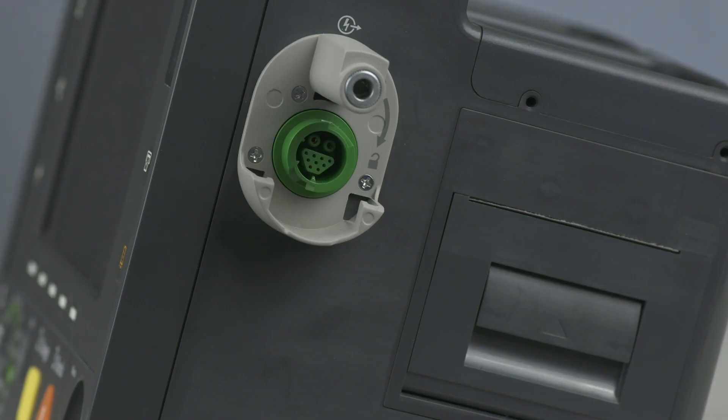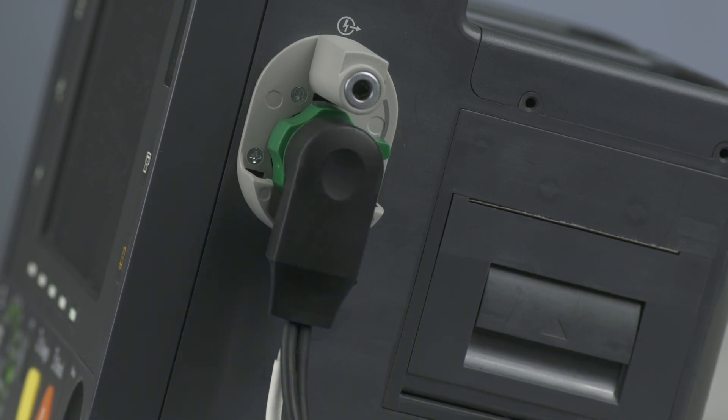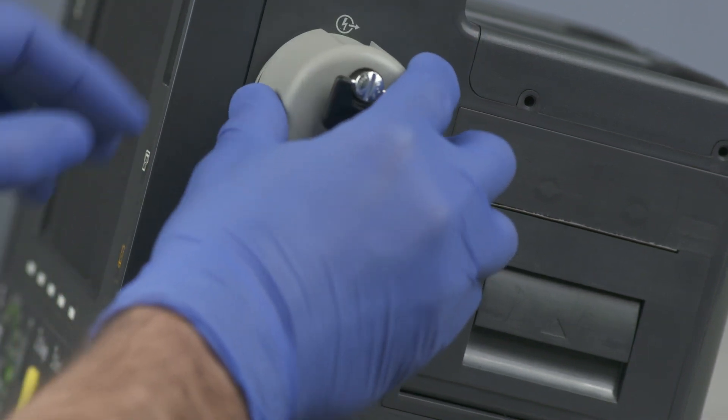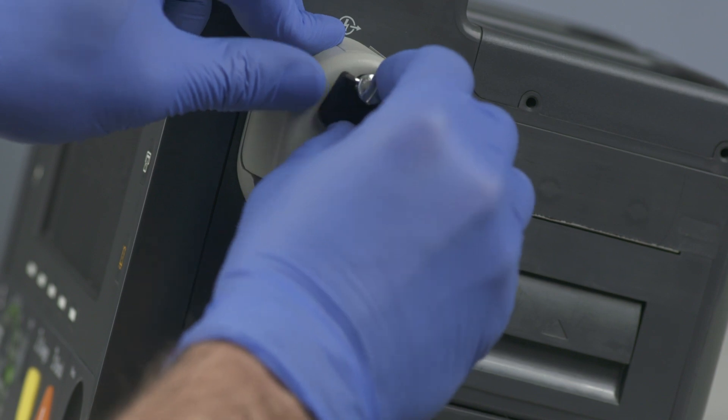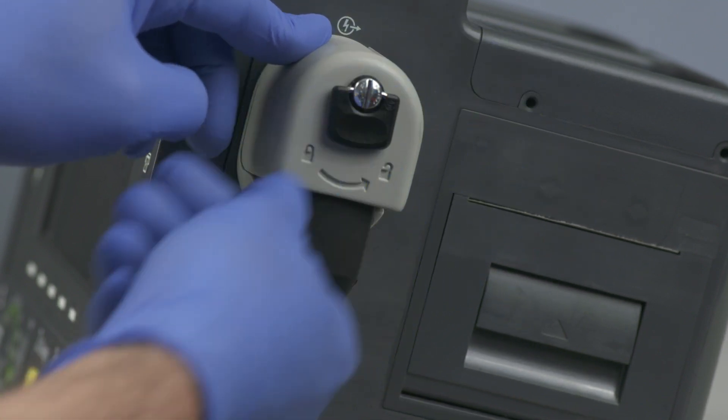A therapy port for paddles — external or internal — or a therapy cable with multifunction electrode pads and, optionally, a QCPR cable, is on the right side. The printer is located on this side as well. If you are using the HeartStart Intrepid for transport or in high-vibration environments, install the therapy cable collar that comes with your device.